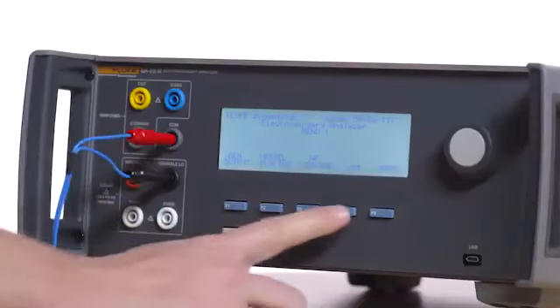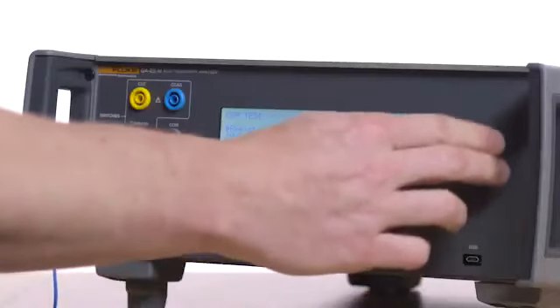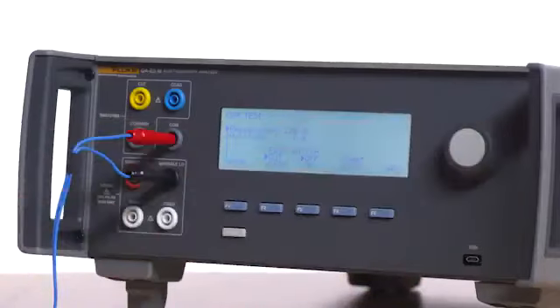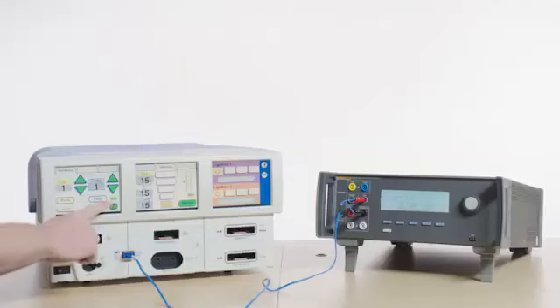Press F4 for CQM. Set the resistance on the QAES 3 to 120 ohms. Confirm the REM indicator is green.